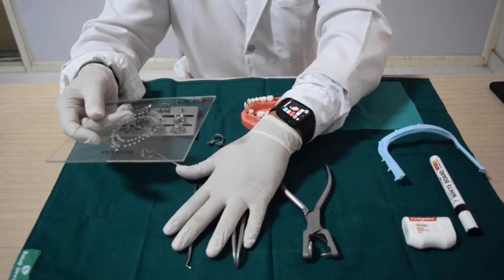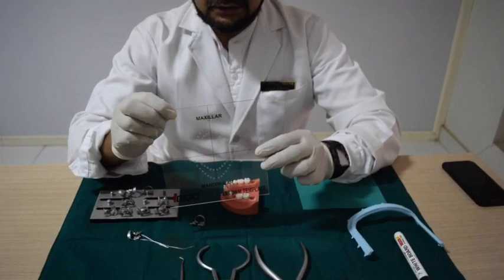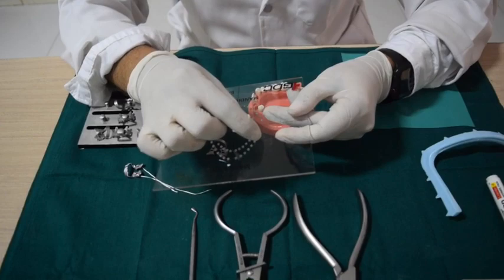So let us go through each and every part. This is called a rubber dam template. If you can see, it is written maxillary and mandibular — this is for the upper arch and this is for the lower arch. When we are selecting each tooth, we can select on the individual hole.